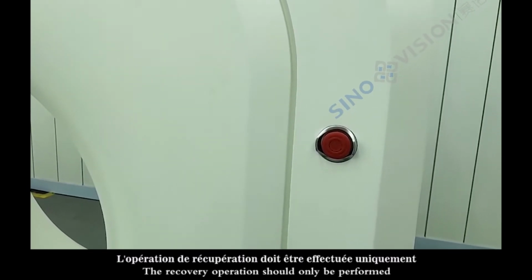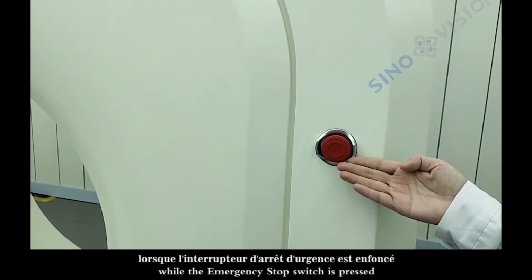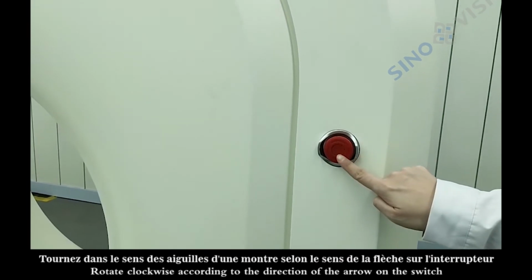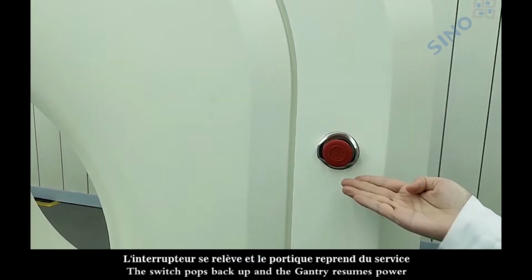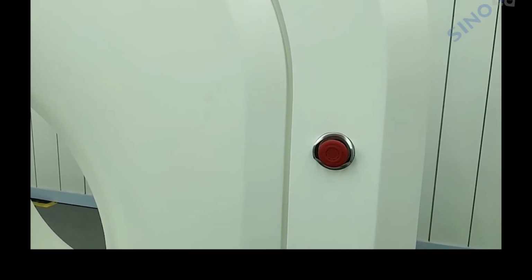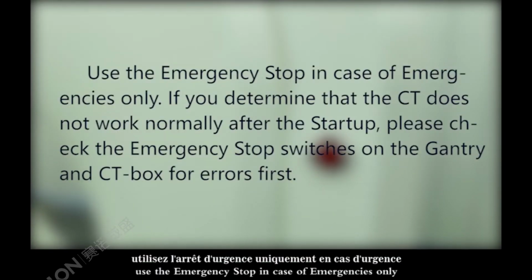The recovery operation should only be performed while the emergency stop switch is pressed. Rotate clockwise according to the direction of the arrow on the switch. The switch pops back up and the gantry resumes power. This recovery process takes 30 seconds. Again, use the emergency stop in case of emergencies only.